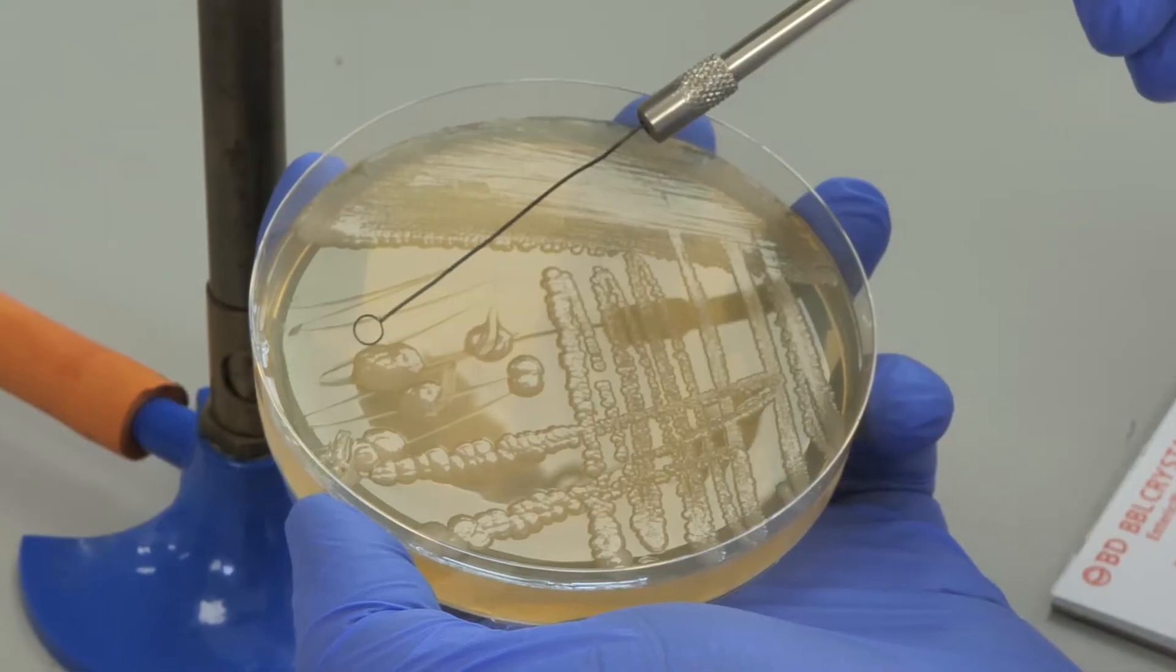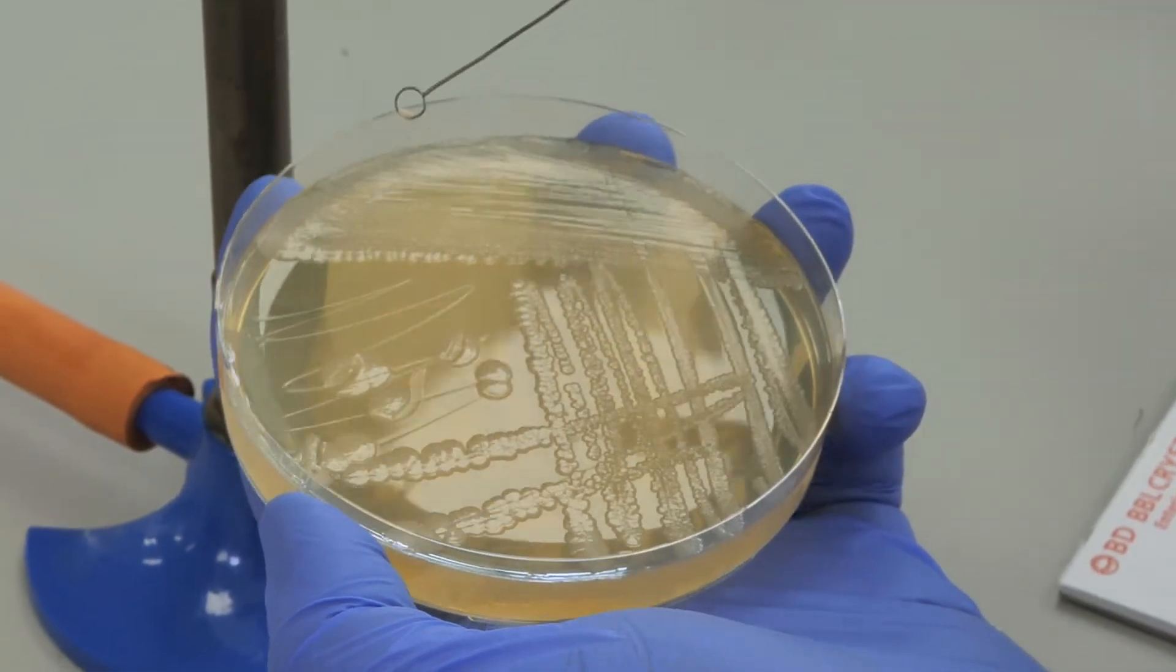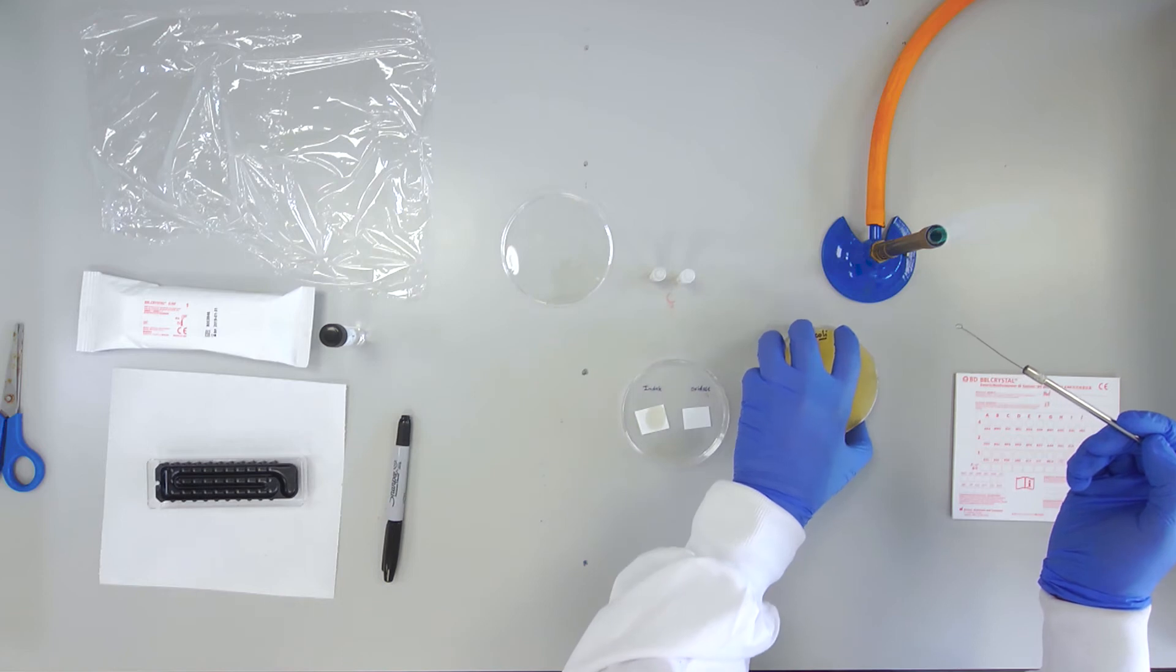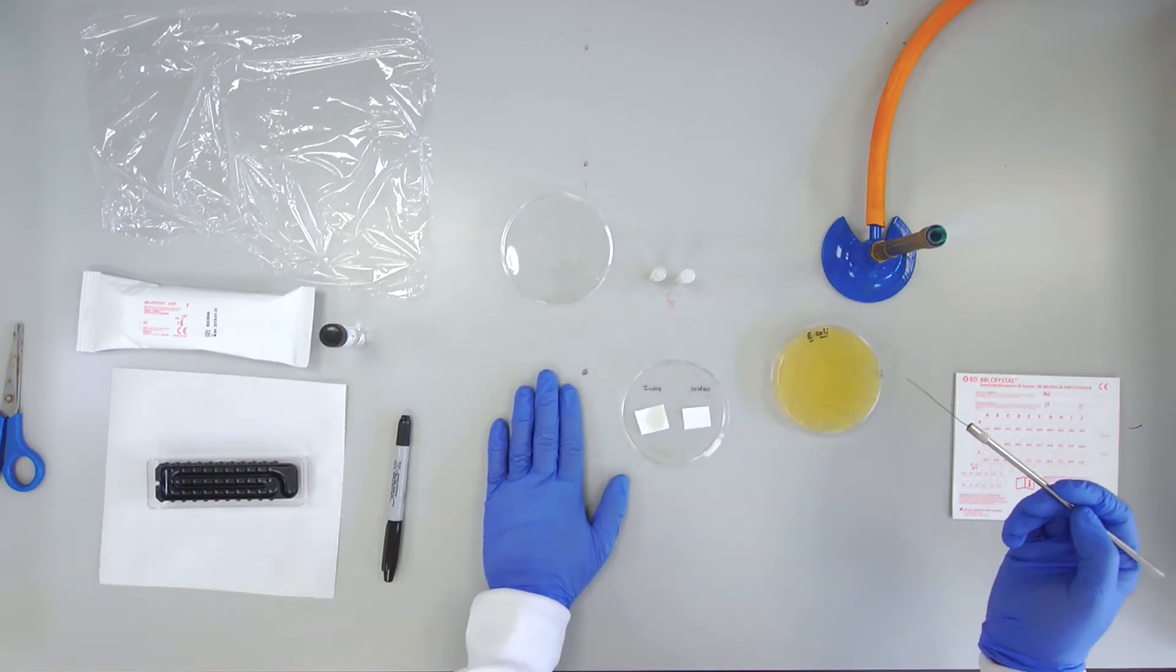Smear a loop full of a bacterial colony onto the filter paper and look for a reaction.